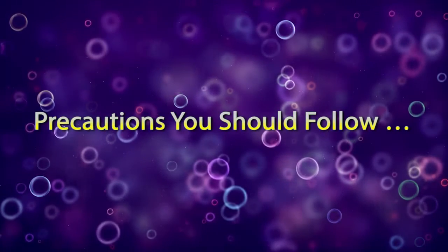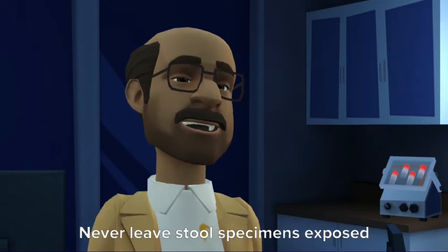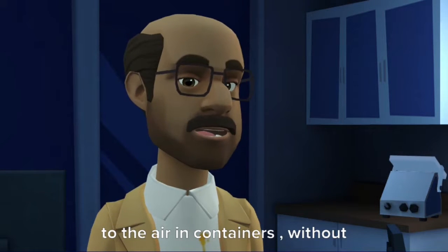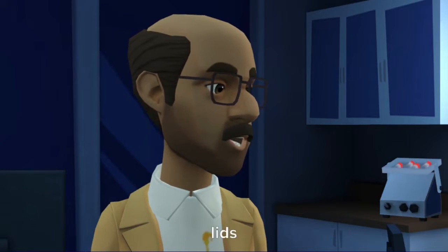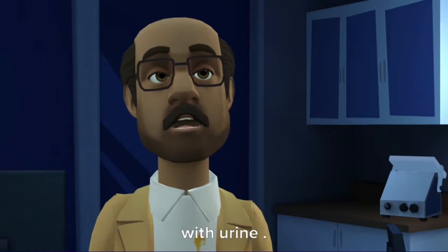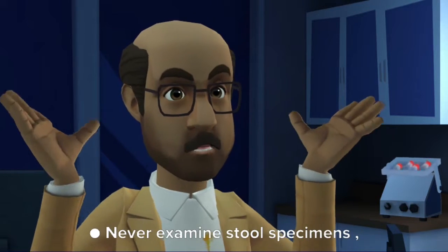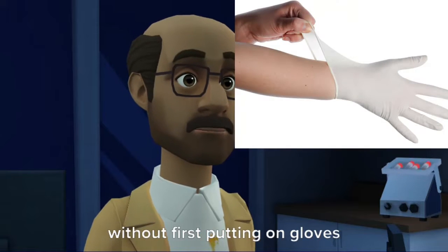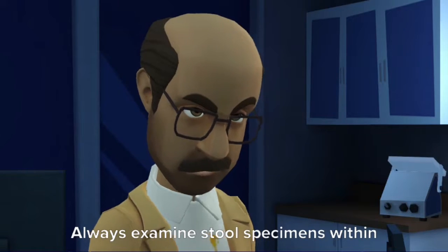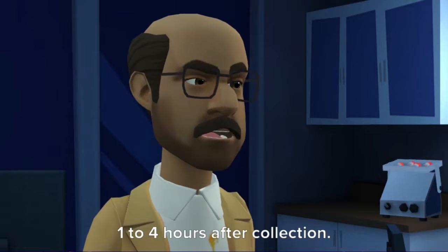Precautions you should follow: Never leave stool specimens exposed to the air in containers without lids. Never accept stool specimens mixed with urine. Never examine stool specimens without first putting on gloves. Always examine stool specimens within one to four hours after collection.